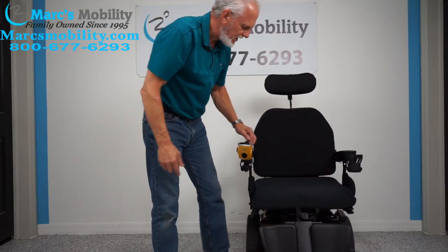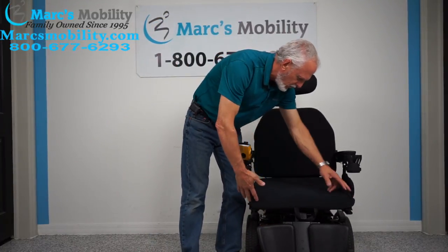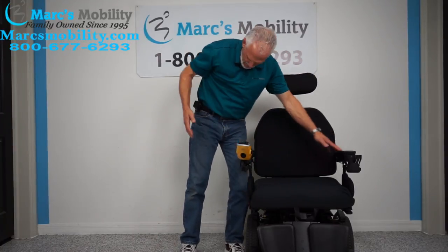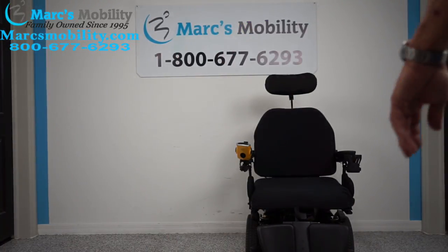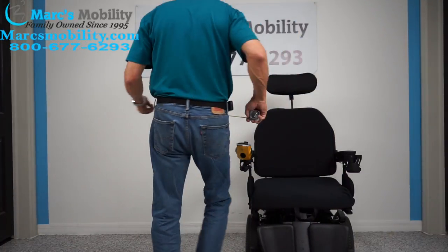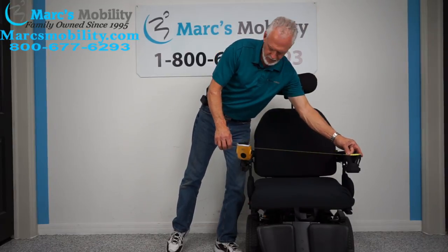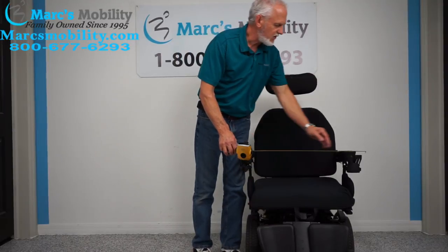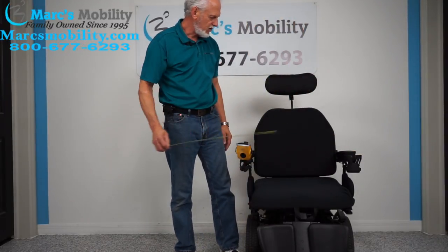The seat on this chair is 21 inches by 21 inches. From outside of arm to outside of arm, remember this — because if you go through a door, your widest point is going to be your cup holder. Safely 28 inches is the width of this chair, from the outside of your joystick to the outside of your cup holder.